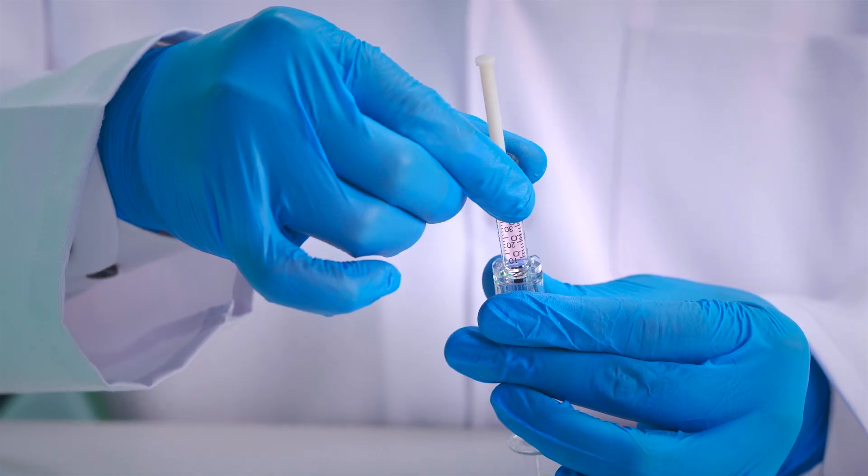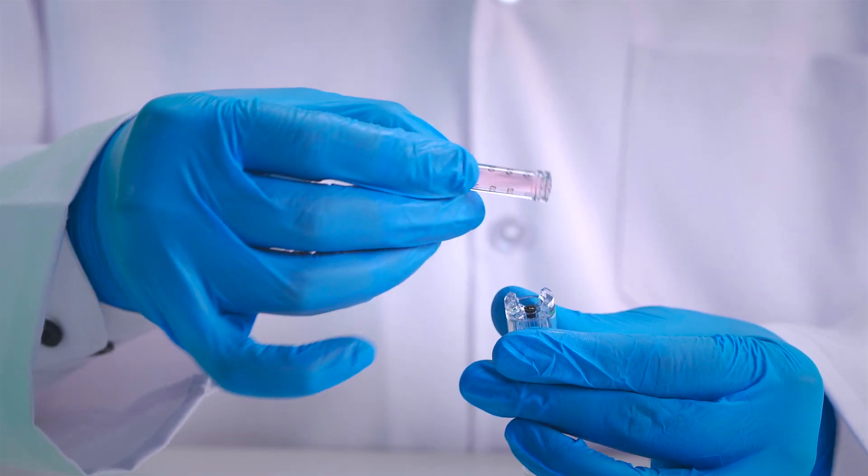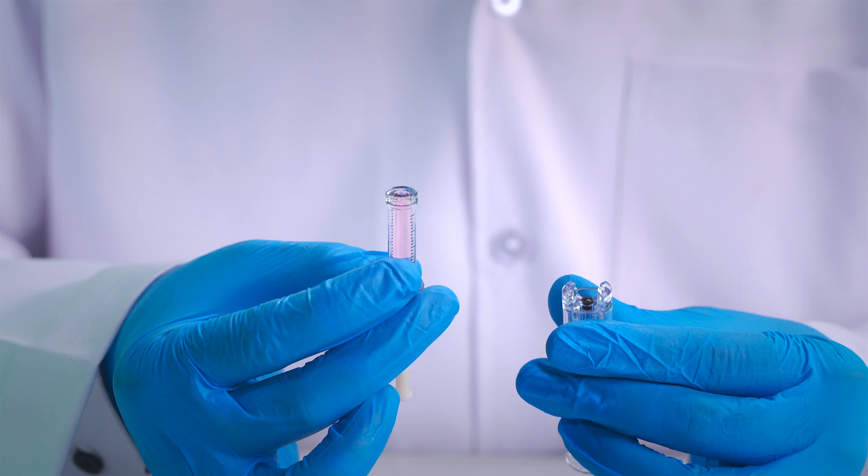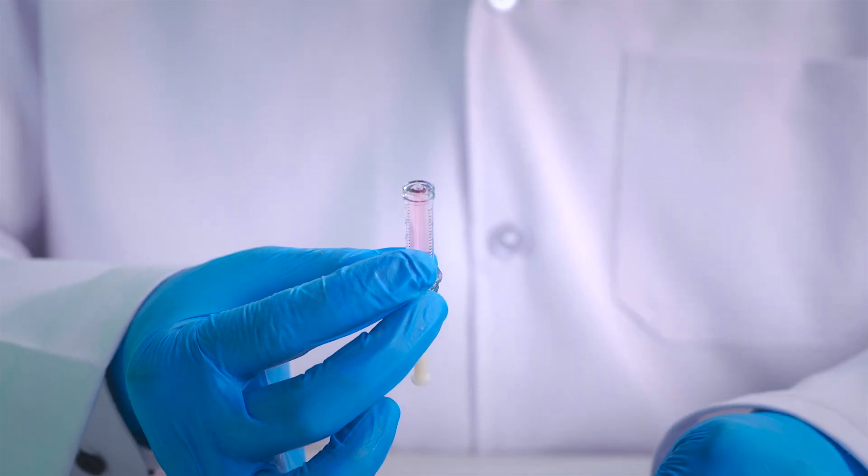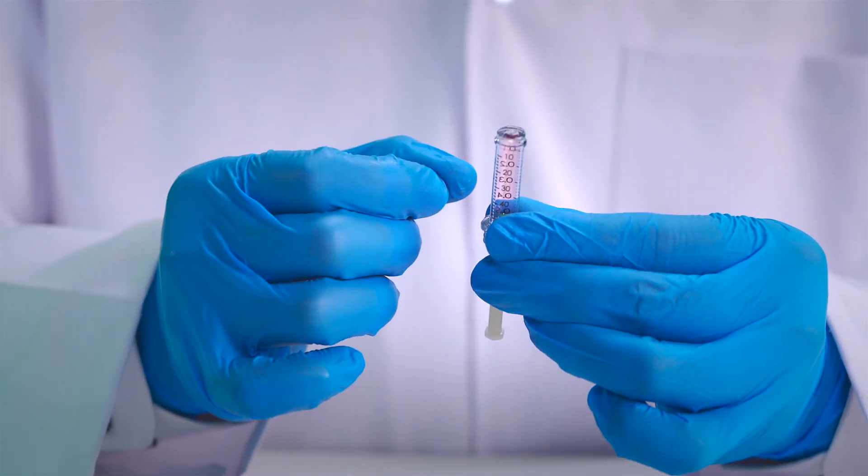Remove the filled cartridge by rotating counter clockwise. Ensure no air bubbles are present by tapping the cartridge.